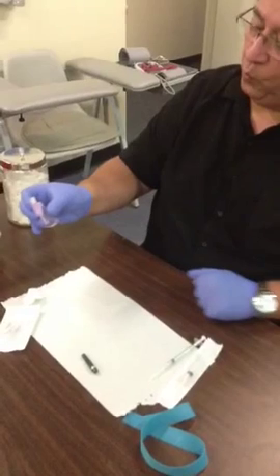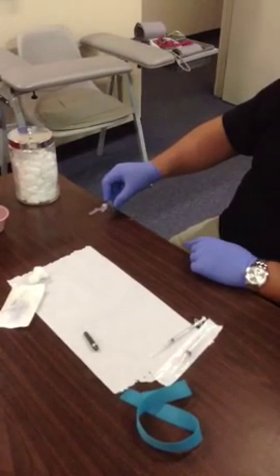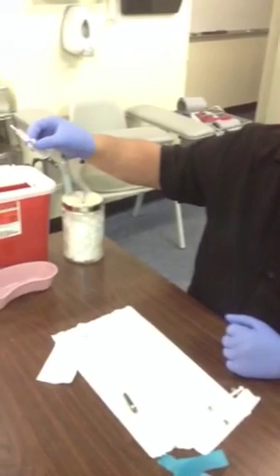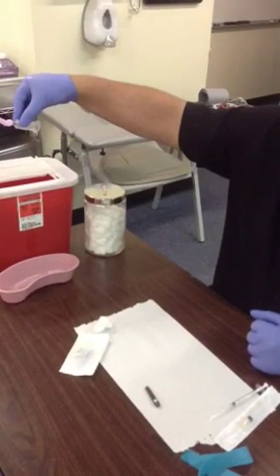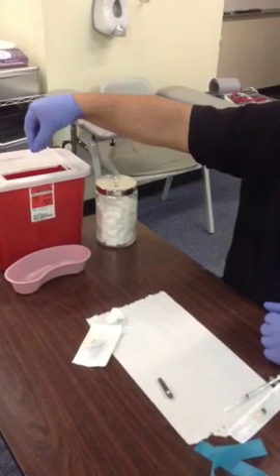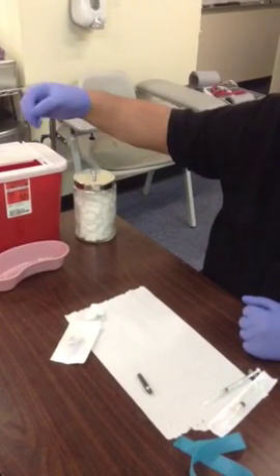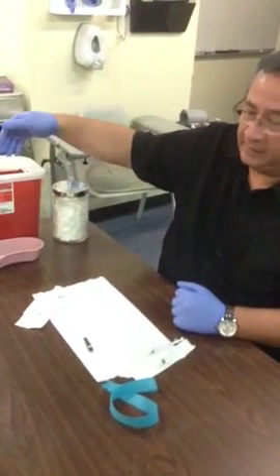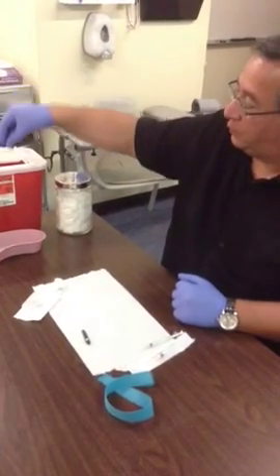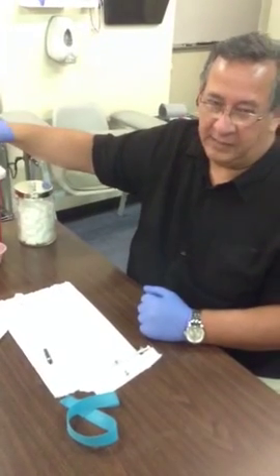When I'm done with this, I'm going to activate the safety device using the table or any hard surface to press the needle into the safety device. You'll hear an audible click which tells you the safety device is now engaged. When you're ready to throw it away, take the needle and place it above the mouth of the sharps container and then drop it. Notice how my fingers didn't go into the mouth — the device just dropped from above. There might be another needle inside sticking up, and I don't want to stick myself with a contaminated needle inside the sharps container. Drop it from above the sharps. A lot of people want to guide the needle all the way down below the mouth, and that's where accidental needle sticks really increase.